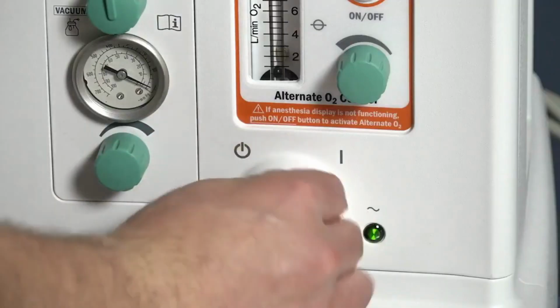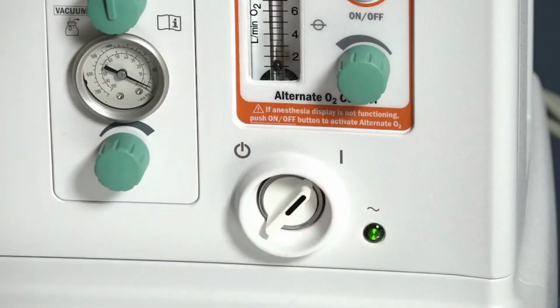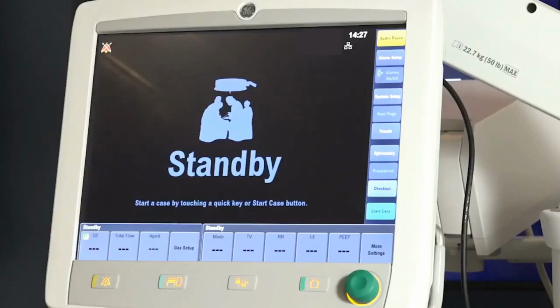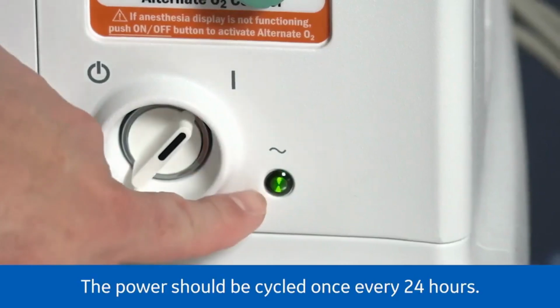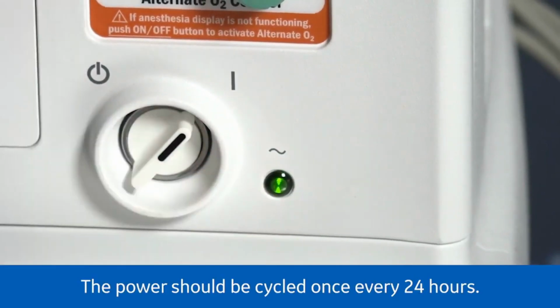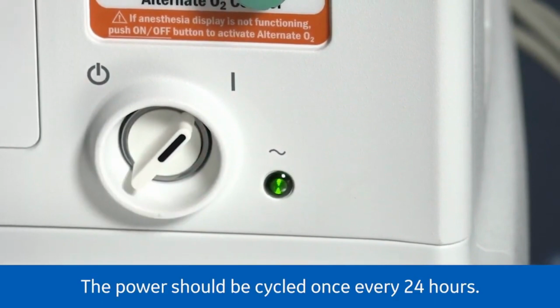To power the system on, move the switch from left to right to the on position. It will take approximately 45 seconds for the display screen to turn on. The green LED next to the system switch indicates there is AC power going to the system.